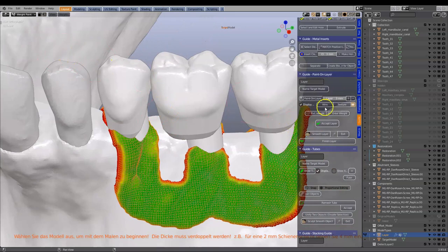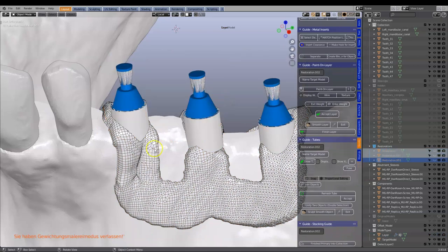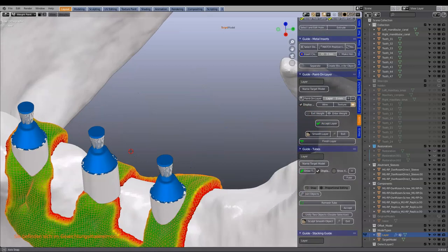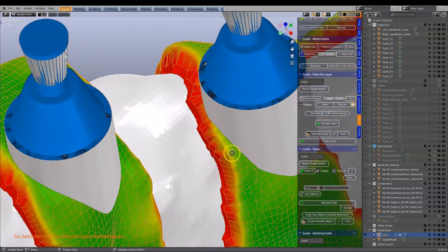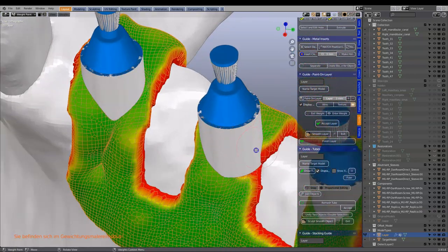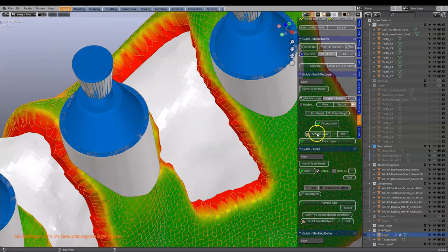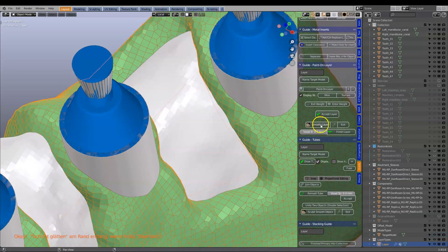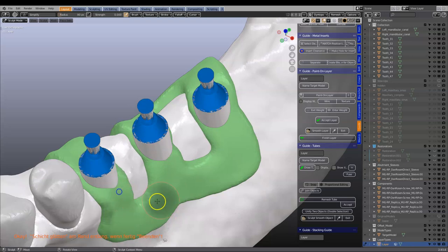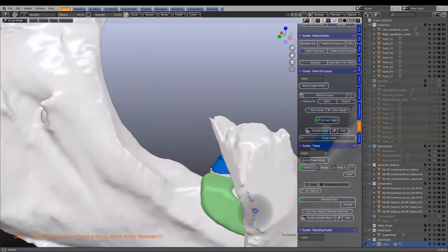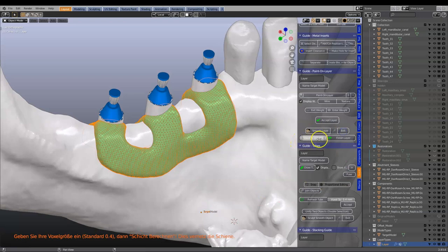For this example I'm going to make an easy layer and set it at 3 millimeters, so that's 1.5 millimeters thick. Again, that is up to you to decide. I'll just briefly exit and re-enter the painting to make sure I've got it nicely covered all the way on both sides. Then we're going to smooth it, accept the layer, and exit to finish it.